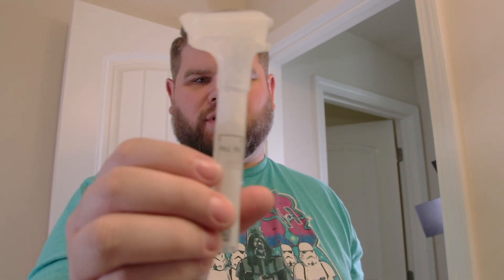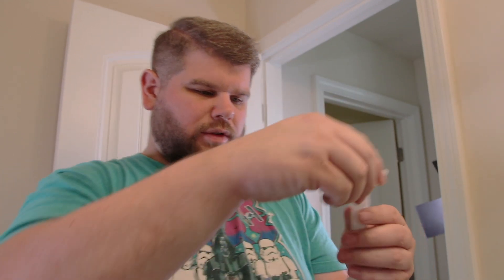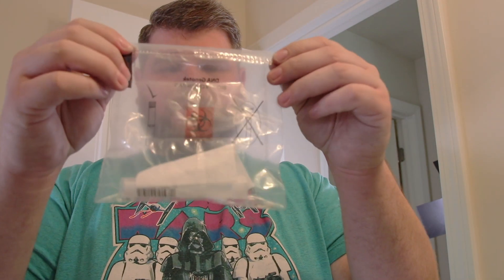So now we press this down. There's liquid inside this tube — we just pressed it down and that's really going to solidify it. So now we unscrew this — there it is. We actually got to screw this cap on. So this is unscrewed, and we screw it on like this. And now our item is safe, we got it sealed in there. Pretty simple.